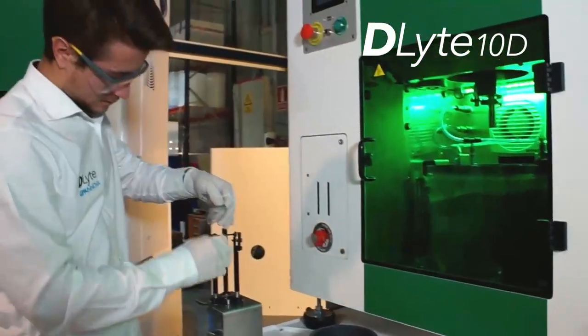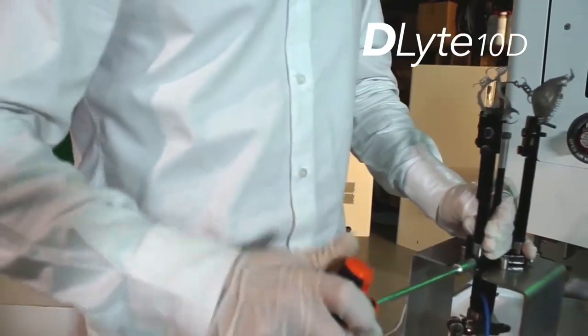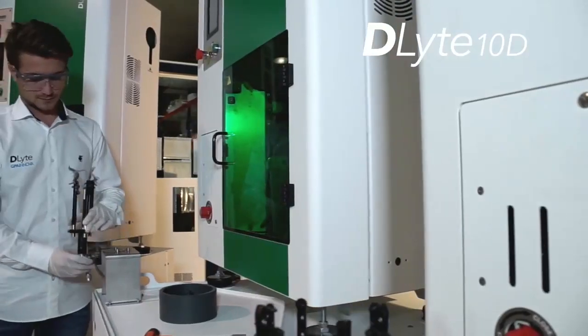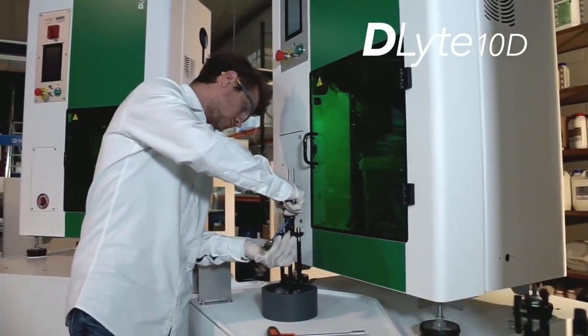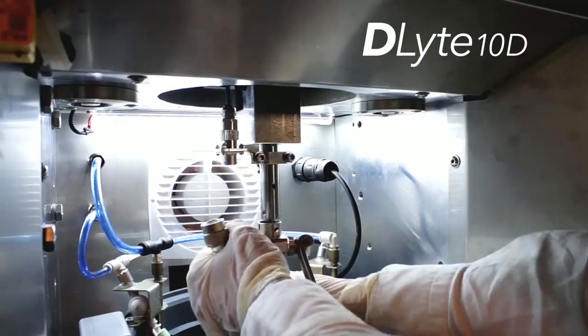With a capacity of three to nine pieces simultaneously, the process is fully automated and does not require any specialized labor. It also enables the industrialization of pieces by removing the differences between them.